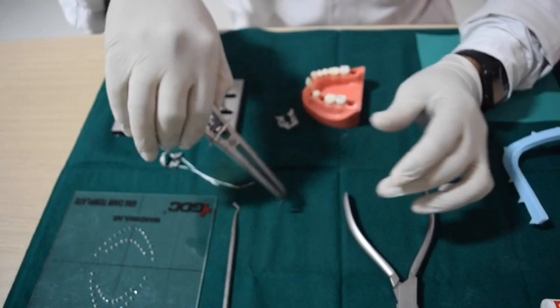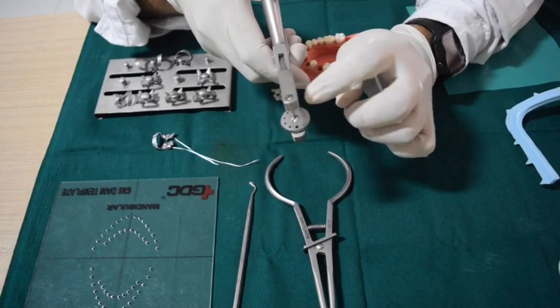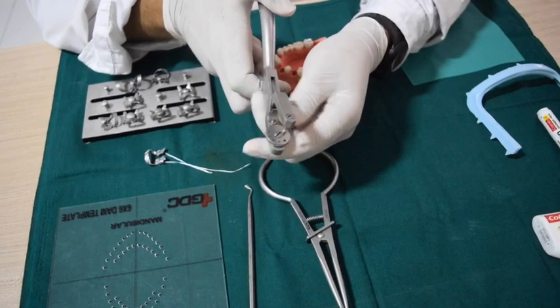The next part is the rubber dam punch. This rubber dam punch is a very important tool — it has got the rubber dam punch table. On the table, if you see, there are holes which are designated for individual teeth.